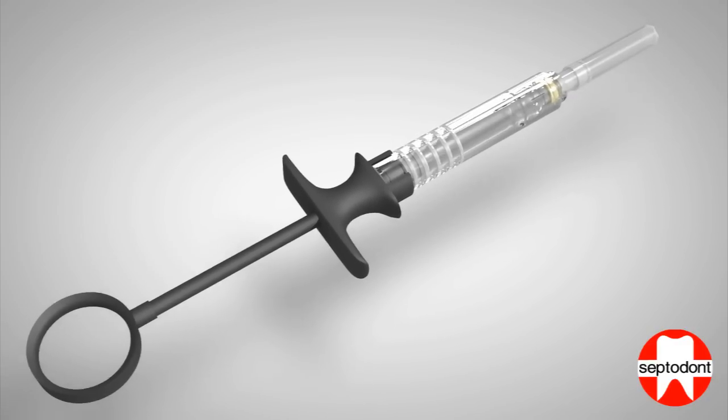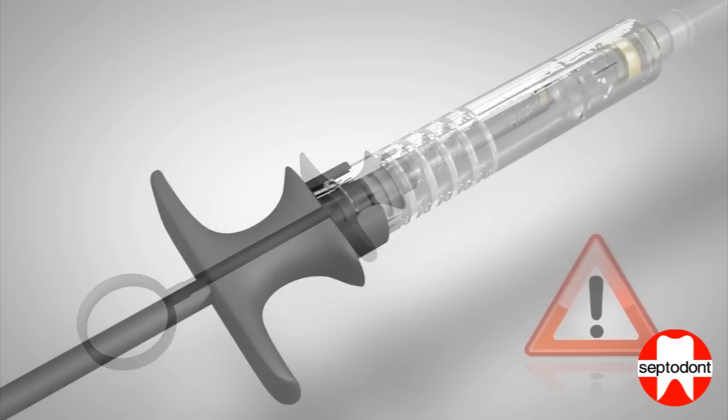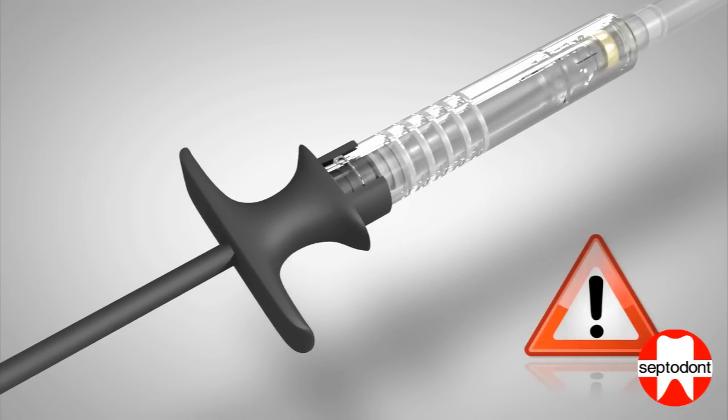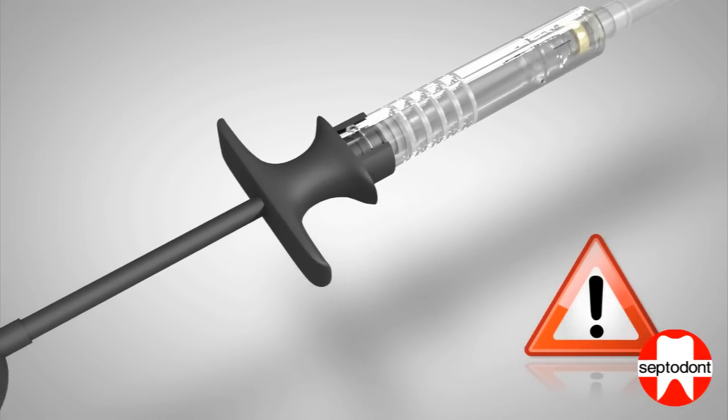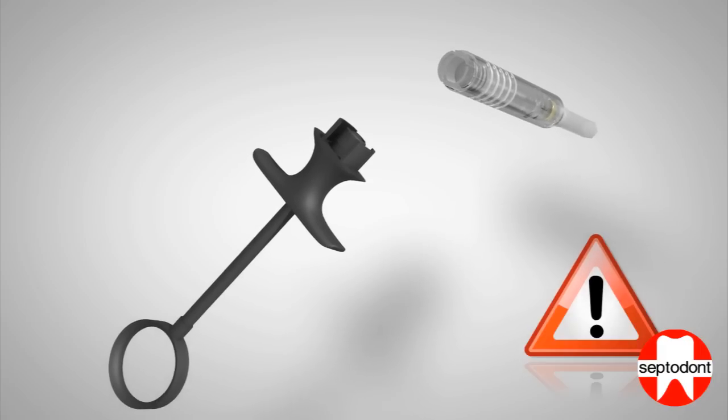Make sure there is no gap between the transparent sheath and the handle. Note that failure to retract the sheath fully until you hear the click may result in the device disassembling during use.